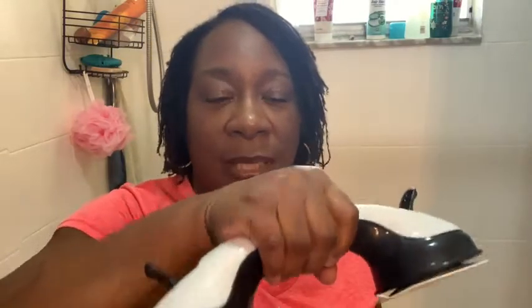This is a perfect addition. All you have to do is clamp it to the walls with the suction cups and it holds so well. It is about 12 inches long and about 4 inches wide. You can see the suction cups are so nice, and the handle to hold it is so perfect — it just fits really good in your hand.